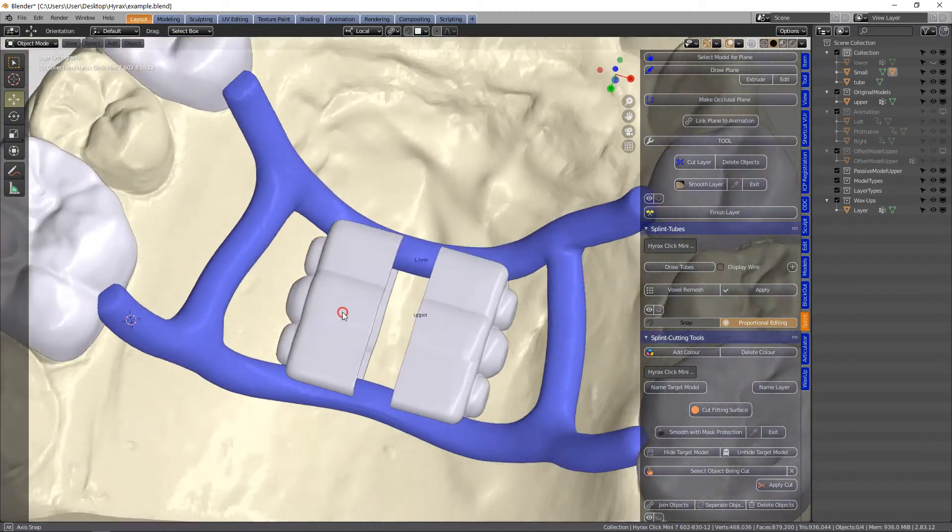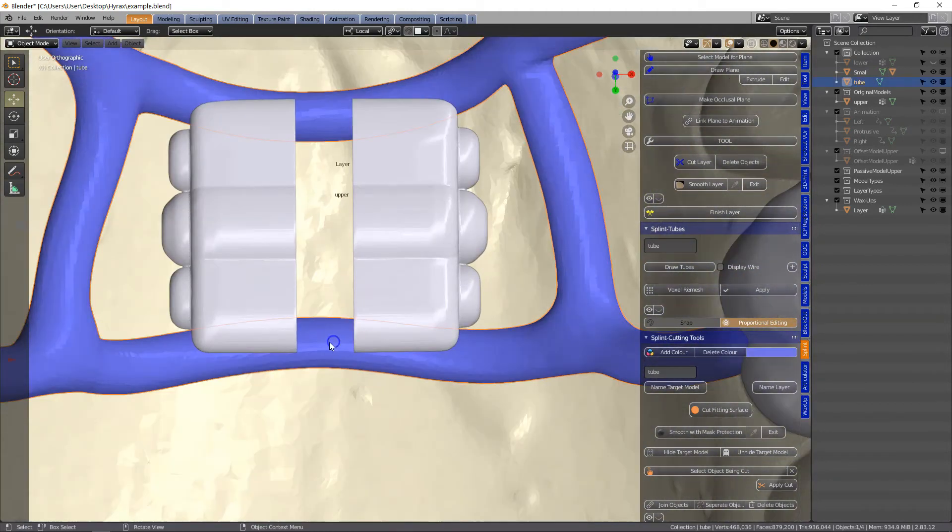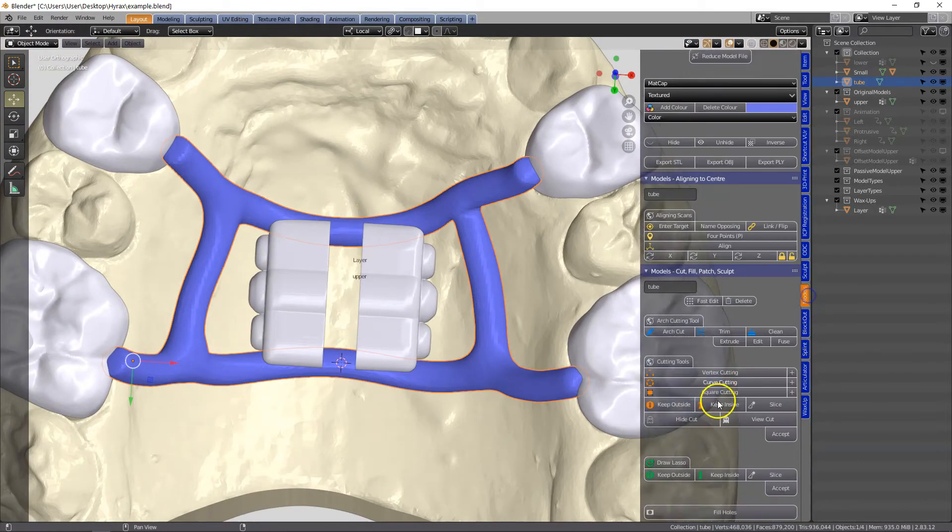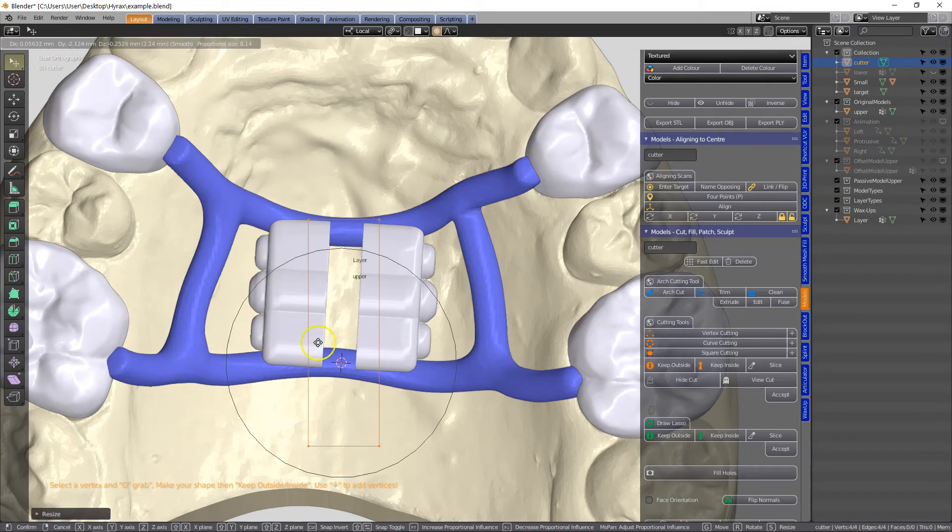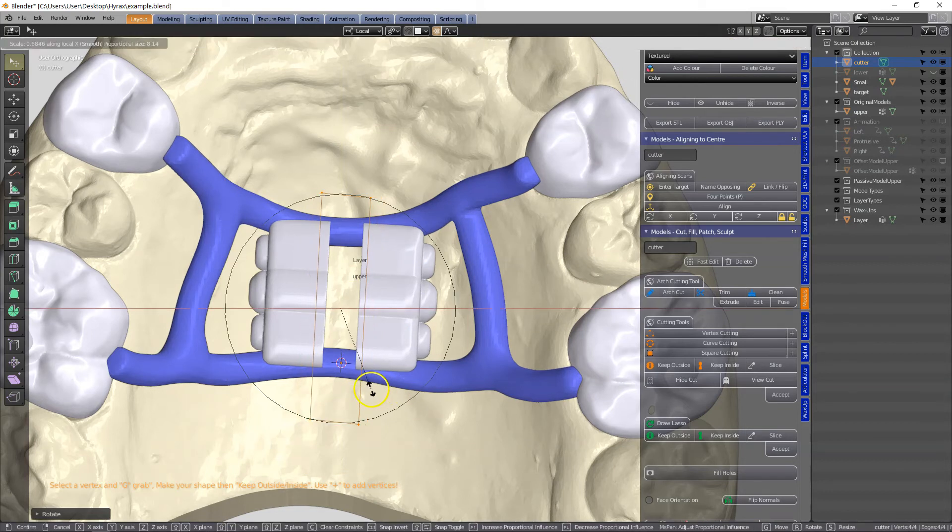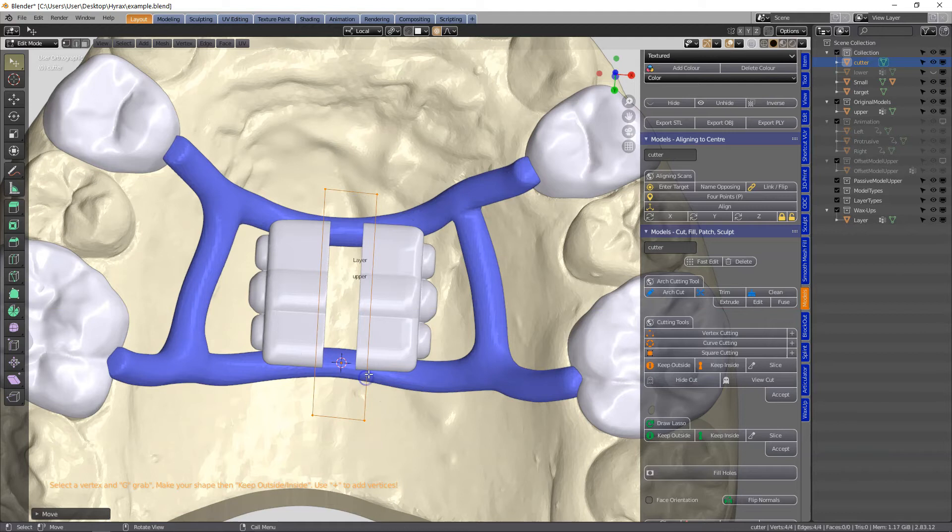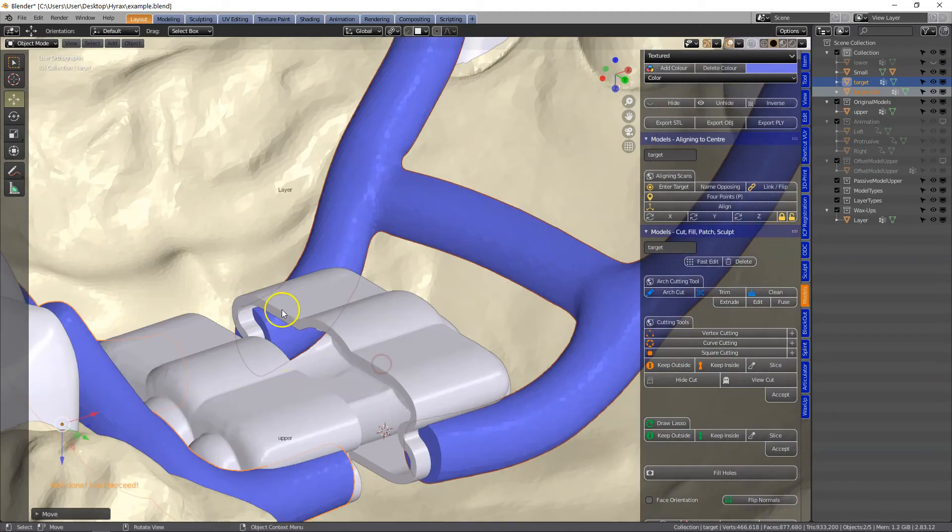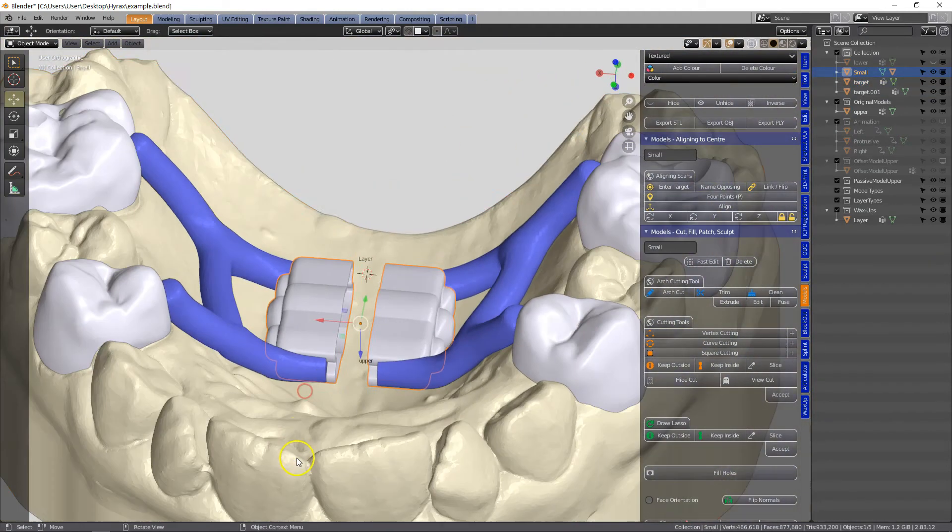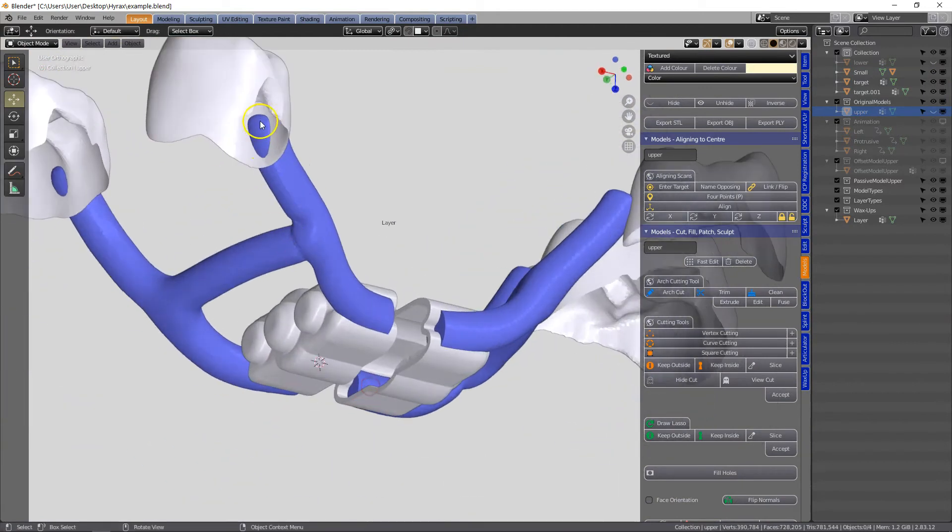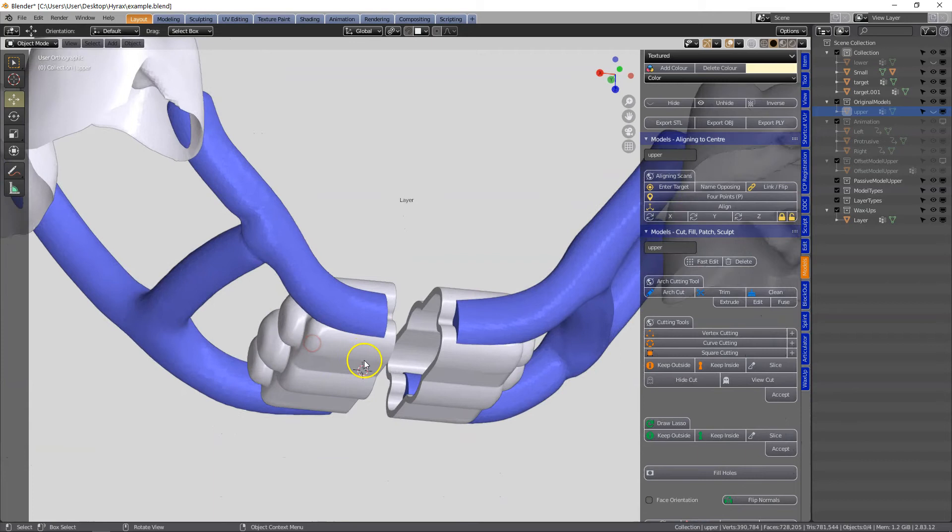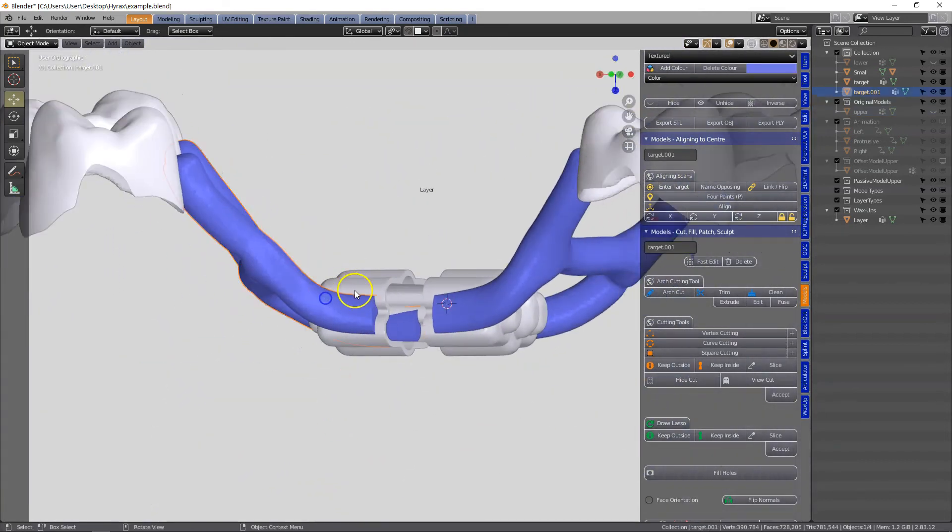Now we need to focus on a few boolean cuts. The first one I'm going to cut the center of this. If you wanted to laser sinter all of it in one go you could do that and then cut it right at the end for example, or you can make a cut now. So in the model designer I've taken a square cutting tool and cut away the section in the middle.